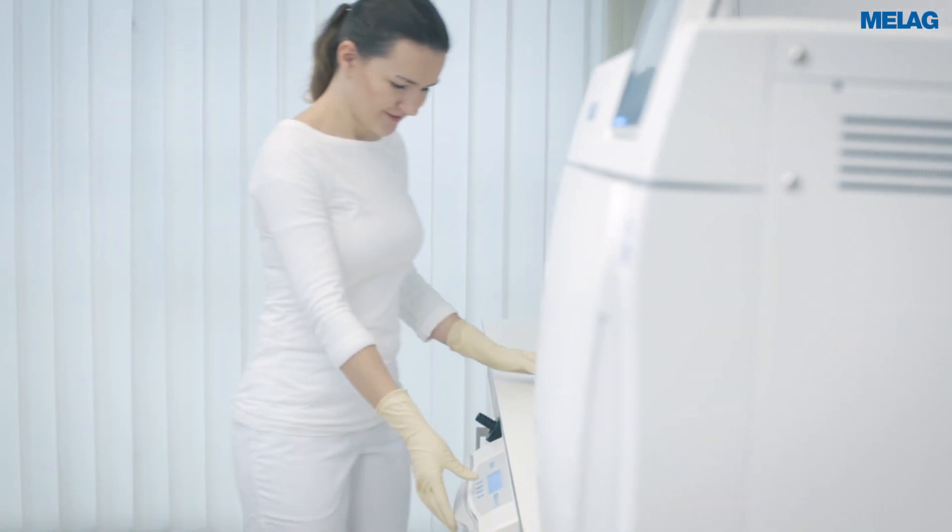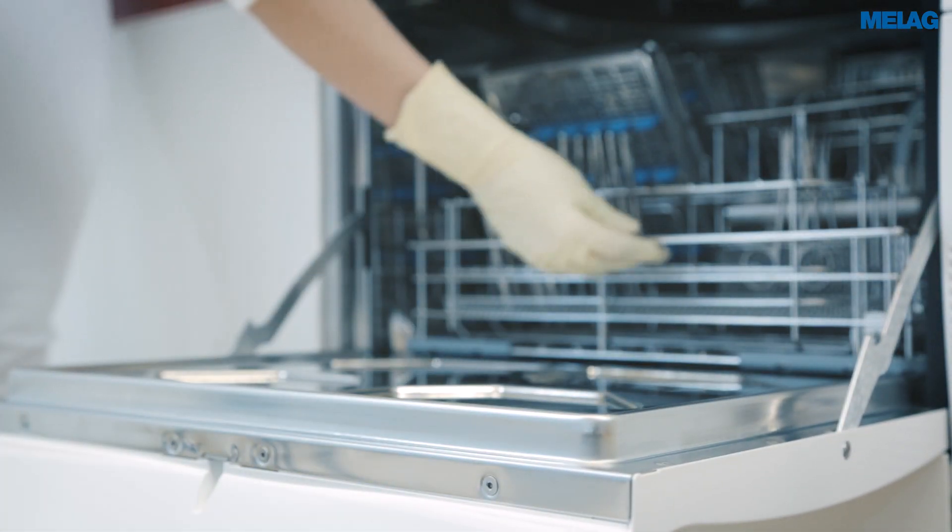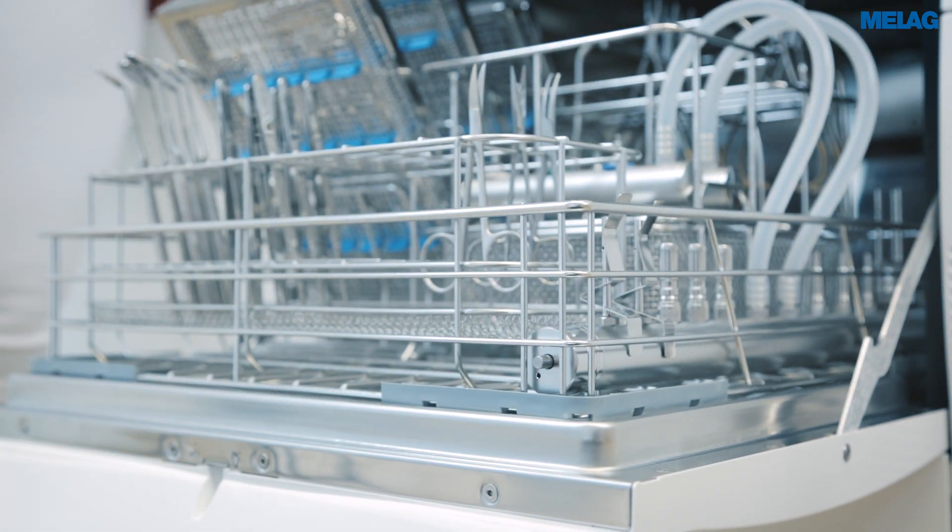The decontamination of hollow body instruments is assuming an ever greater importance in dental clinics. The basis basket, with an injector rail and central filter, provides a reliable and economical solution.